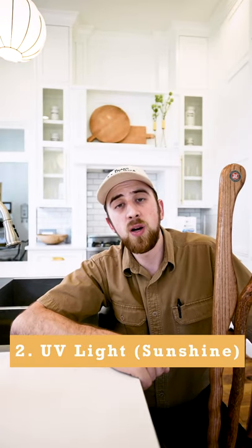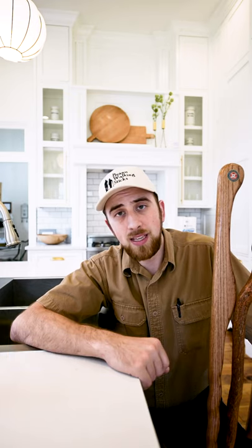Number two, you could expose all surfaces of your walking stick or walking cane to UV light, and that would also be an effective way to kill any virus or bacteria. If you want to go this route, that's alright — especially if you have a tanning bed, that would be perfect. Most of y'all probably won't have one of those in your house, but you probably do have a window. I wouldn't recommend putting it outside in direct sunlight, but inside a window with direct sunlight would be a perfect place to kill some bacteria, kill some virus. It's a little iffy if you can get every single crevice exposed to the light every which way.